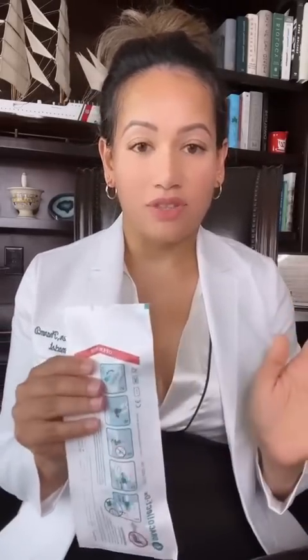When your sample is collected, put it in the envelope and return it. Before you begin, make sure your hands are clean and that you haven't eaten anything for at least half an hour before collection time. All of this is covered in the directions. There are about 15 different languages available, so make sure you read the directions first before getting started.